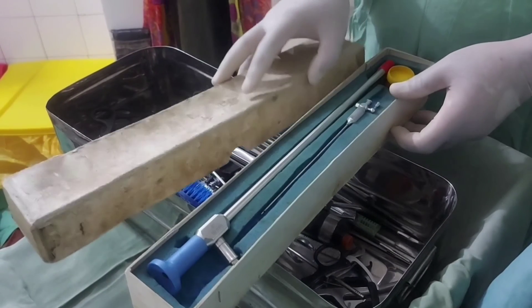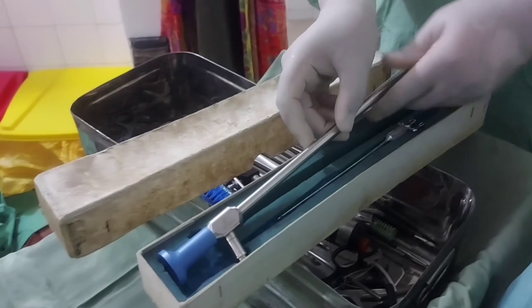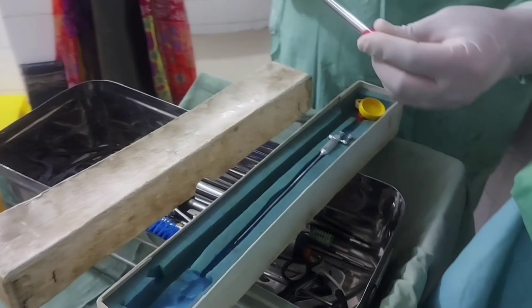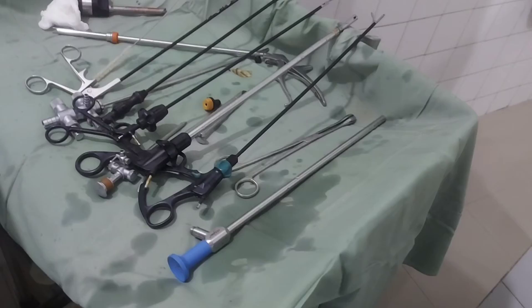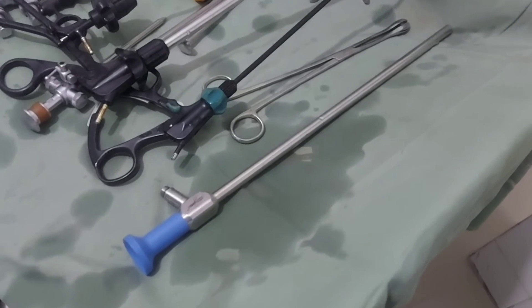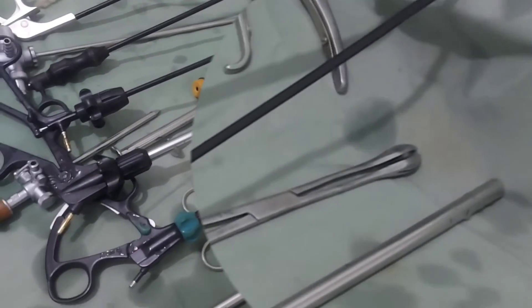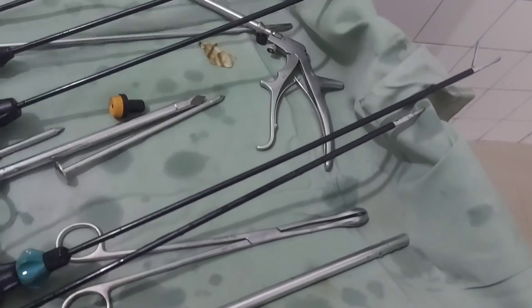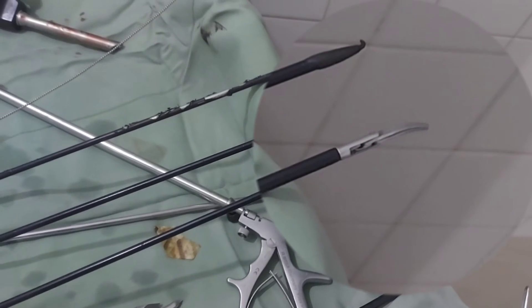We will show different instruments used in laparoscopic cholecystectomy. This is the laparoscope — there are different types and angles used. The next instrument is the stone extractor, which is used when there is a difficult gallbladder extraction: first gallstones are removed with this extractor, and then the gallbladder is removed from the 11 millimeter port.